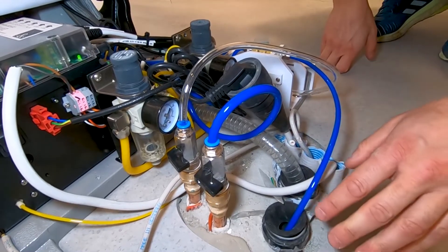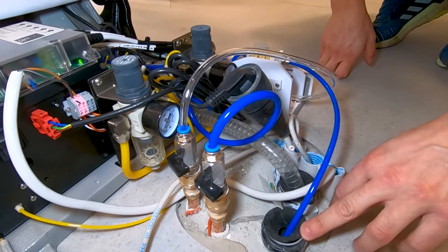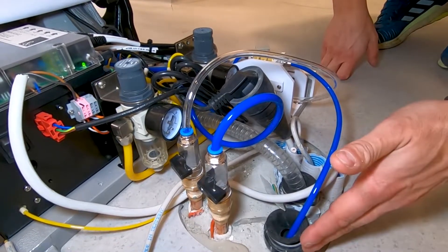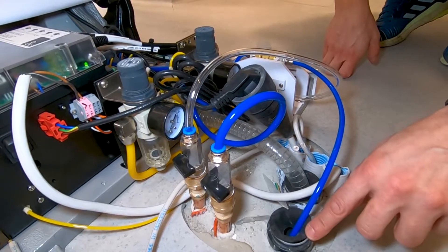In this case, I wanted to put in any way a drain pipe, so in case you need it in the future it is already present. So we have this one that goes to the suction motor and this one that is for the drain.